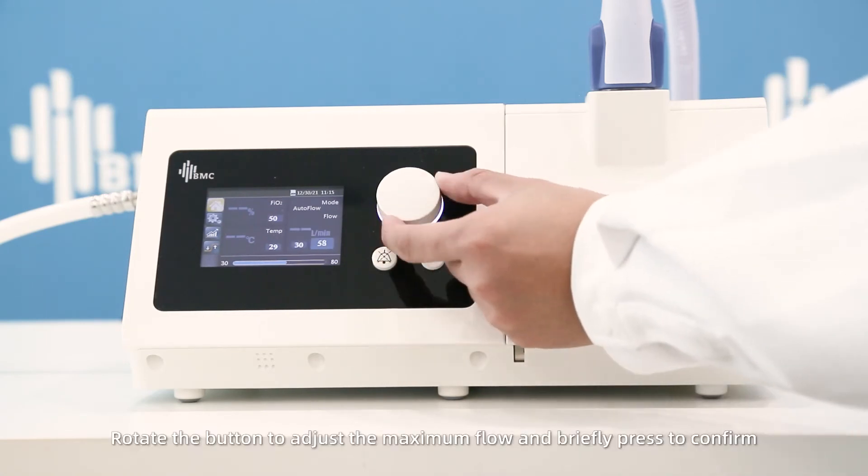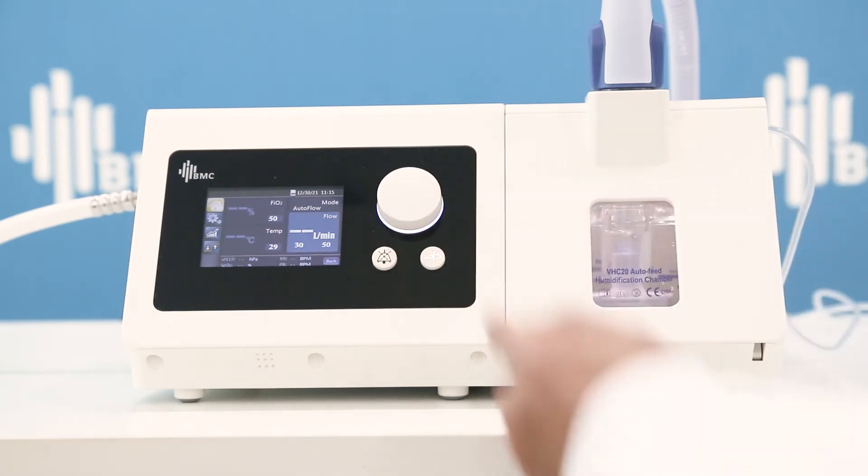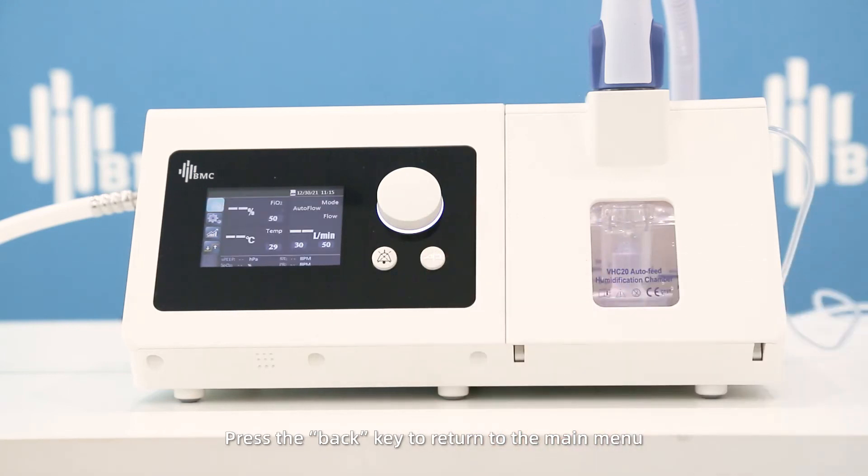Rotate the button to adjust the maximum flow and briefly press to confirm. Press the back key to return to the main menu.